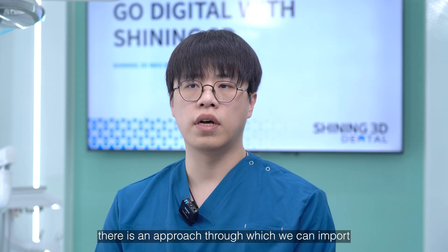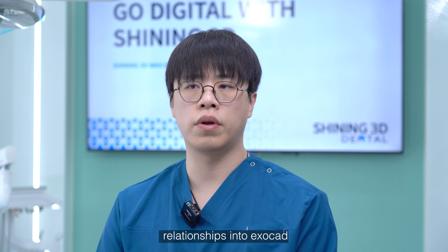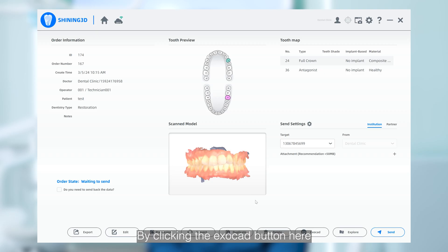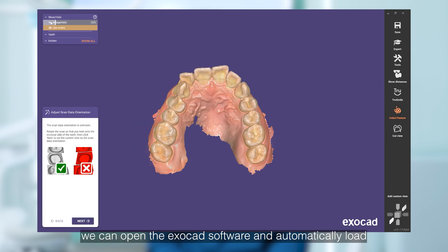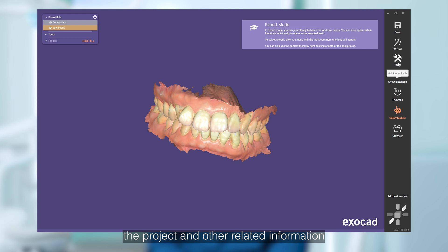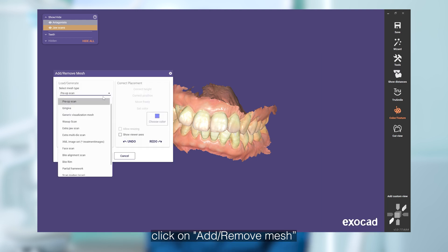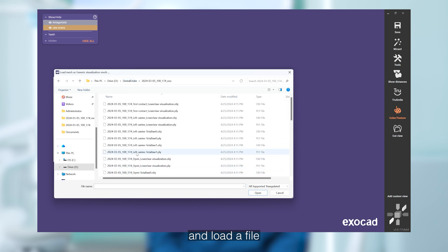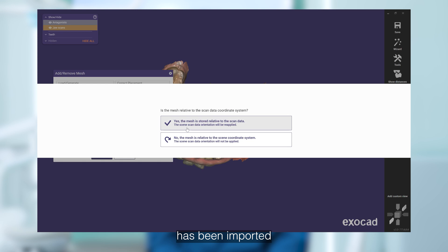Additionally, there is an approach through which we can import all occlusions of multi-jaw relationship scans into ExoCAD. I will show you now. By clicking the ExoCAD button here, we can open the ExoCAD software and automatically load the project and other related information. In Expert mode, click on Add Remove Mesh, select Visualization Mesh, and load the file. Then you will see another antagonist has been imported.